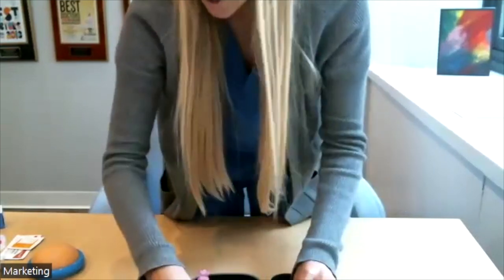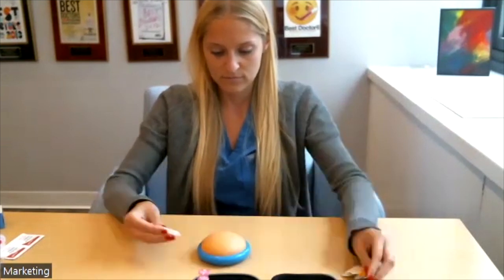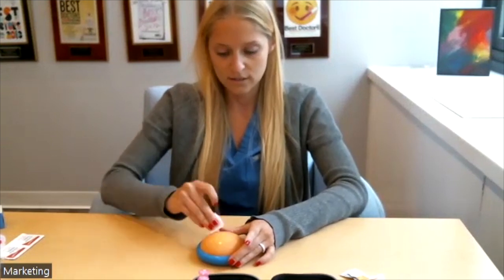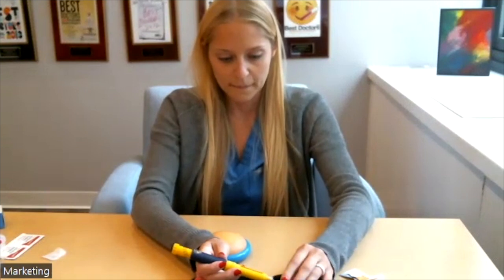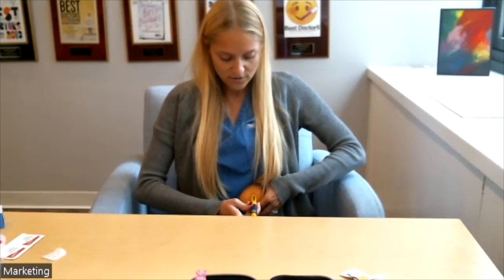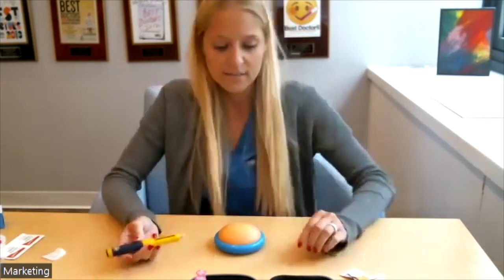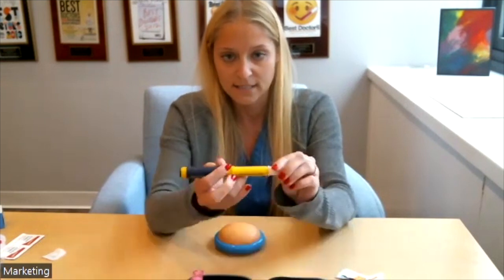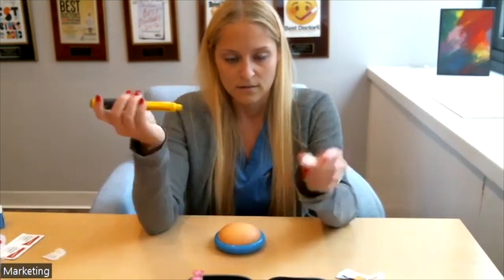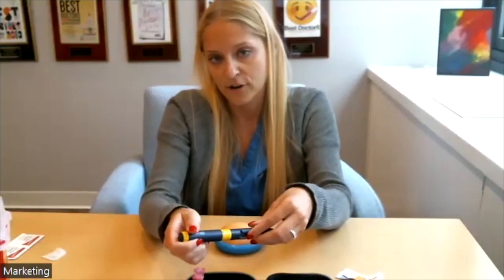You're ready to take the top off and do the injection. Clean your target skin, take the top off and twist it off, then put it in your sharps container for disposal. Each pen comes with 900 units in total. If your daily dose is 300, each pen is good for three days, so you put a new replaceable needle on every day before you give yourself the injection.